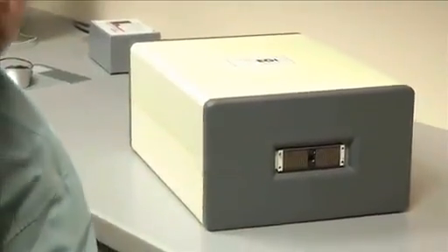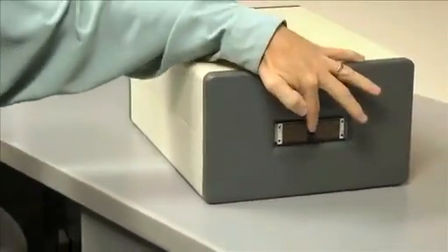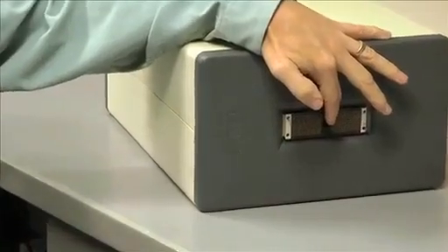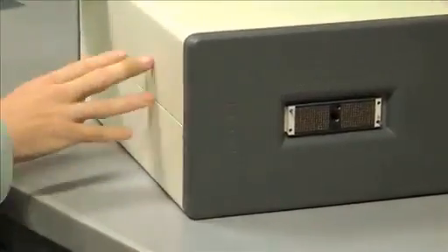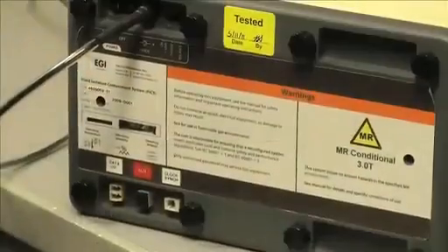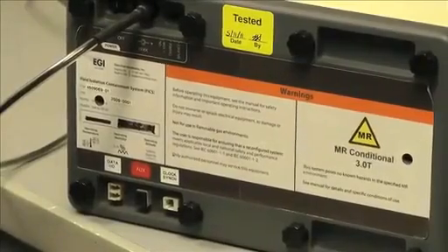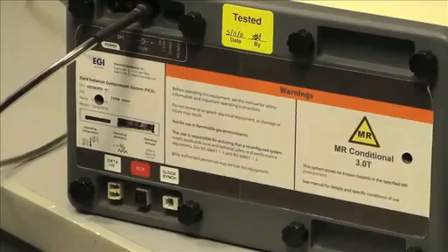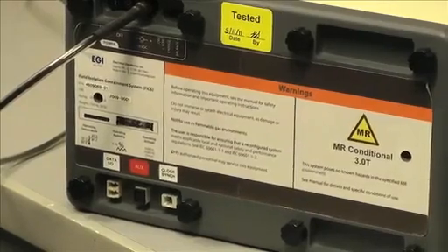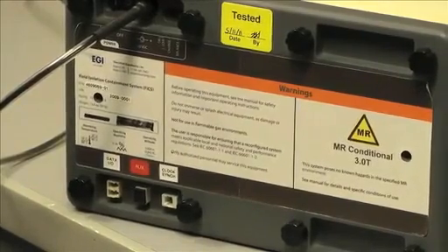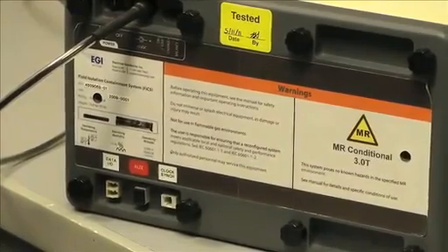Each of the EEG inputs are electrically filtered to exclude the coupling of radio frequency energy into the battery-powered amplifier. In order to collect EEG and fMRI together, the timing of both instruments must be aligned with nanosecond precision. However, to preserve shielding, wired electrical signals should not be carried in or out of the scan room.